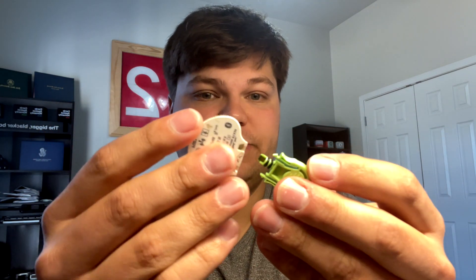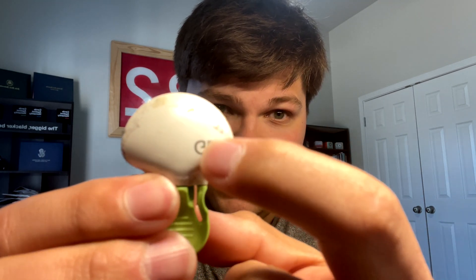I'll open one to show you — it just pops on, locks in, and gives you a good thing to hold on to with your transmitter. This little piece right here is just some adhesive that I can pull off; it's kind of like tape — I just scratch it with my fingernail and work it up. I can pull that off and it cleans most of the center part. But you can see there's a lot of adhesive buildup around the edges.